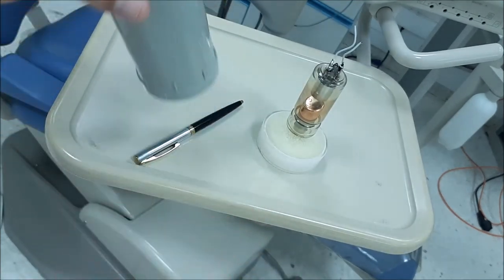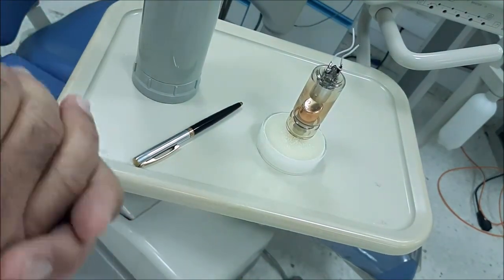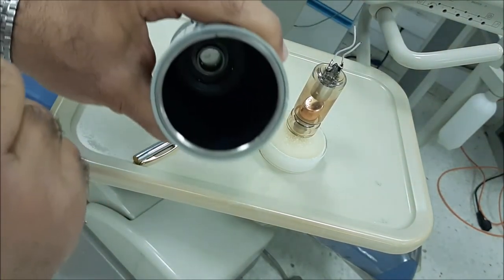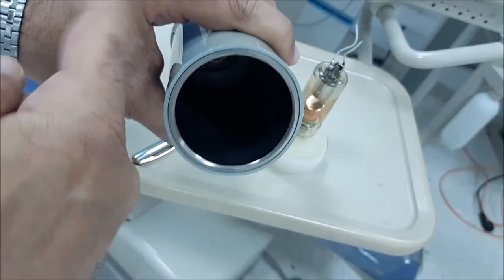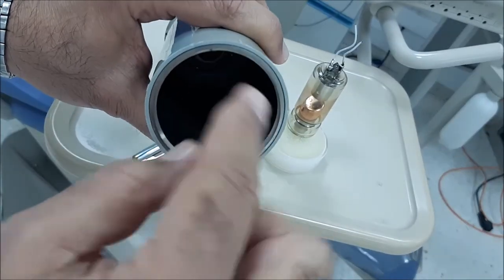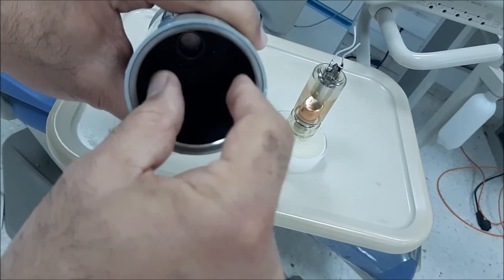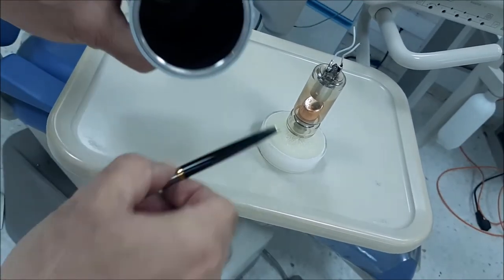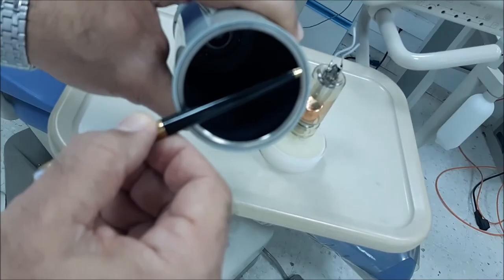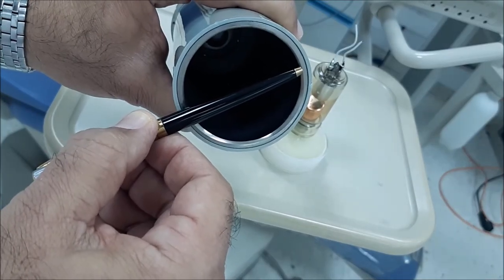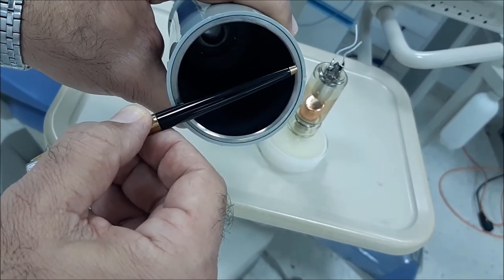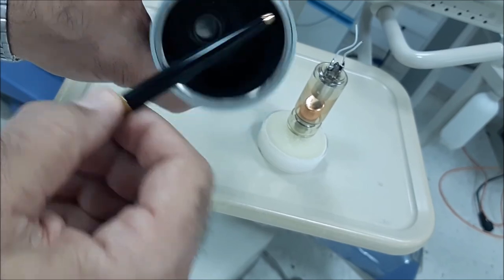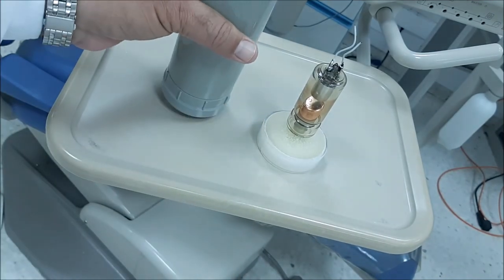So this also aids in a reduction of the exposure to the patient by limiting or removing all x-rays that are present outside the cone, so that only the x-ray reaching to the patient will be used. The diameter here is seven centimeters so that it covers the maximum intraoral film that is placed inside the oral cavity. This is the action of the collimator.